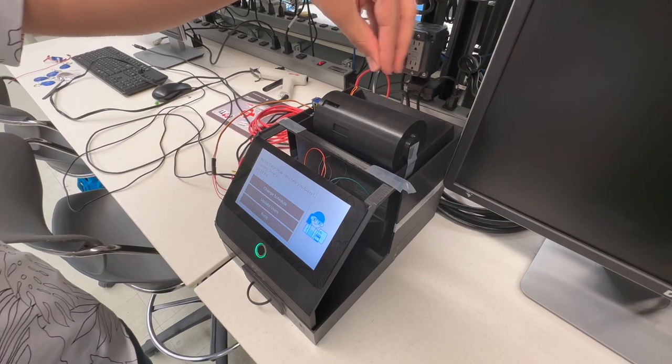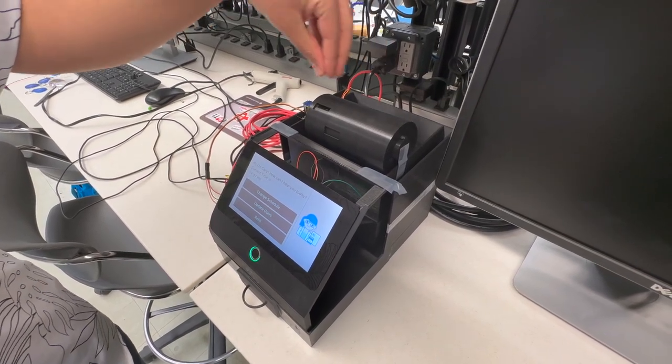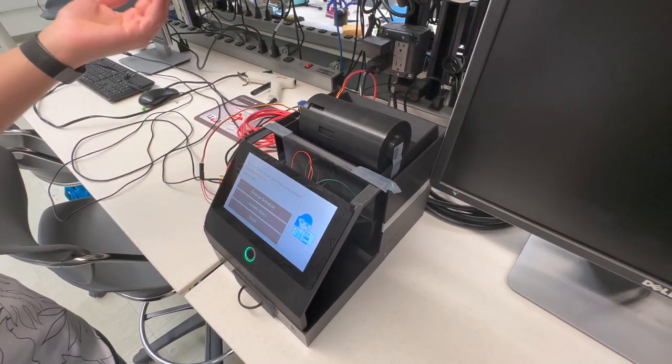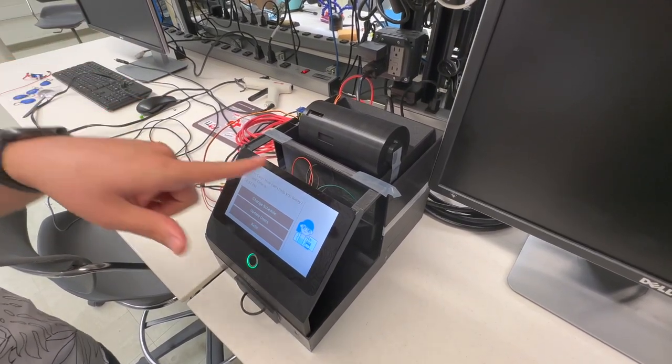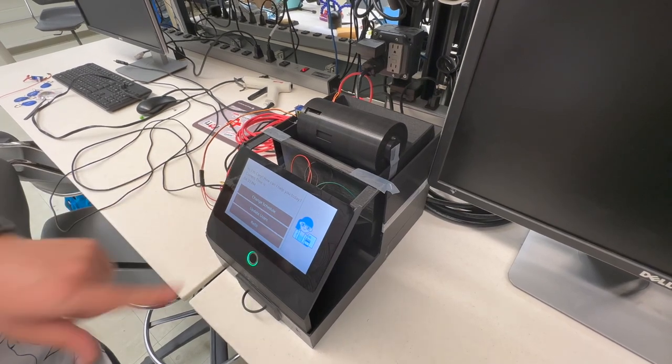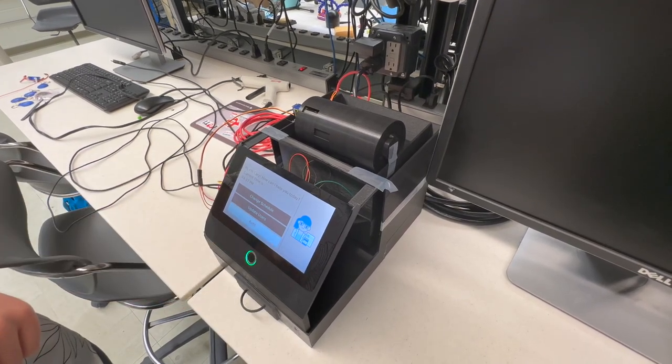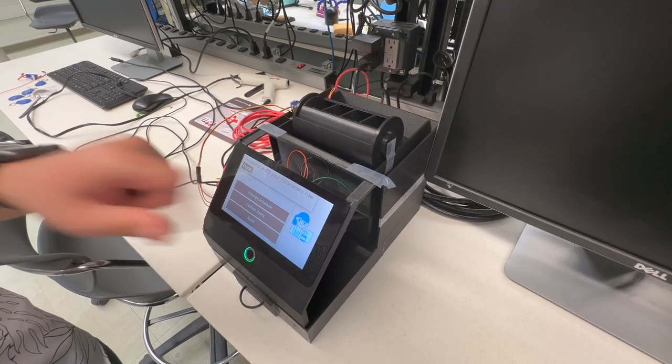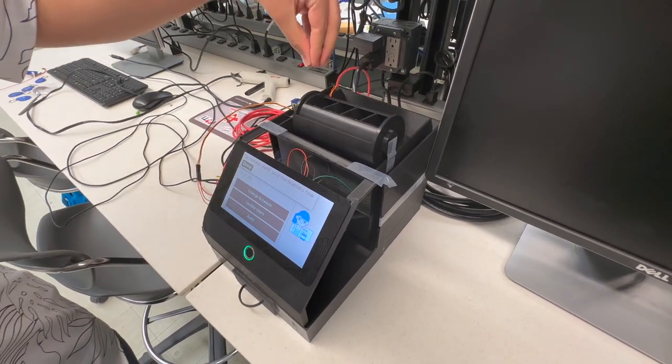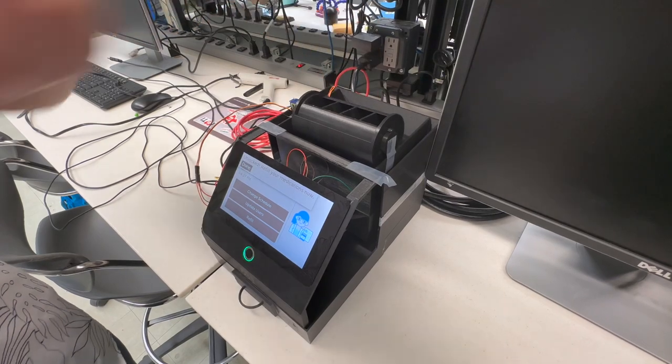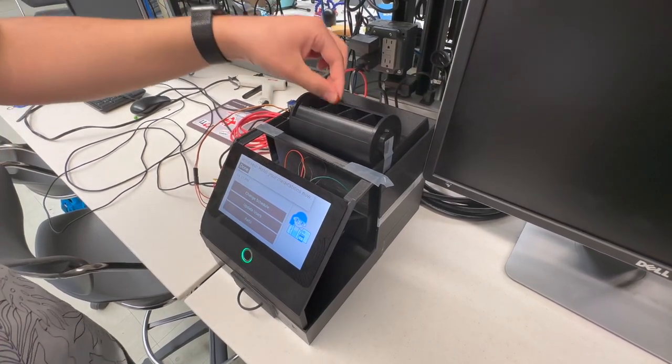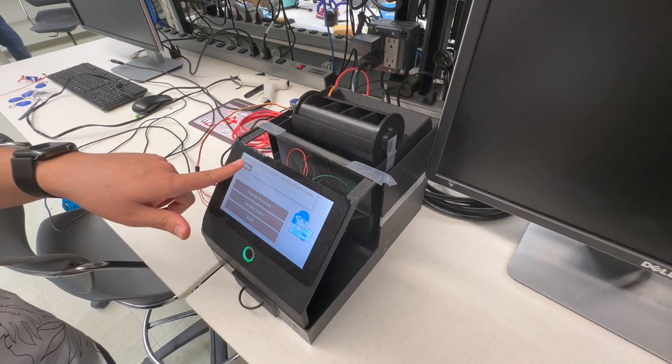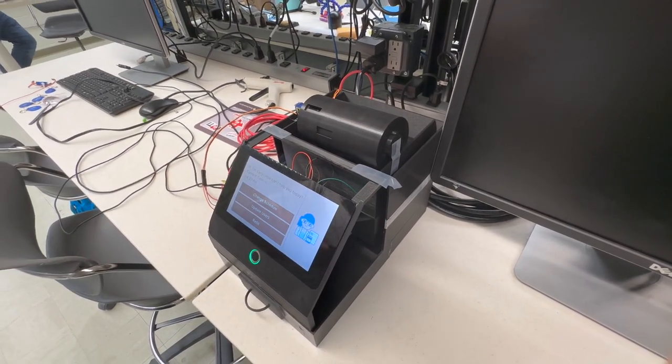These right here are the chambers where you will refill your prescription medication. There will come a time where you will need to refill them. Go to the main screen and hit the refill button. It will display a message that says the device has unlocked. Whereas before I couldn't access these chambers, now it's fully open and I can refill my prescriptions like so. Once I'm done, I just hit the done button and the device returns to its locked state.